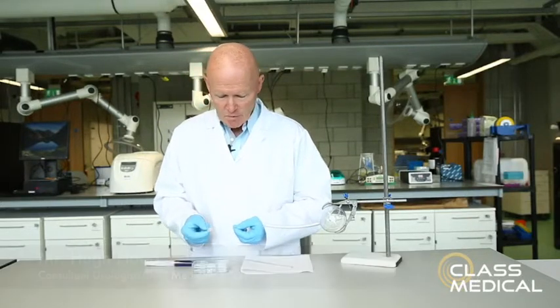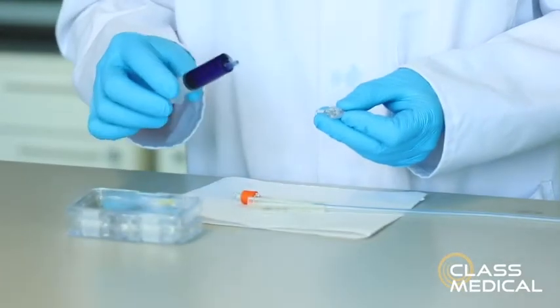The tuck safety valve is a sterile single-use device which can be simply incorporated into the catheterization process.